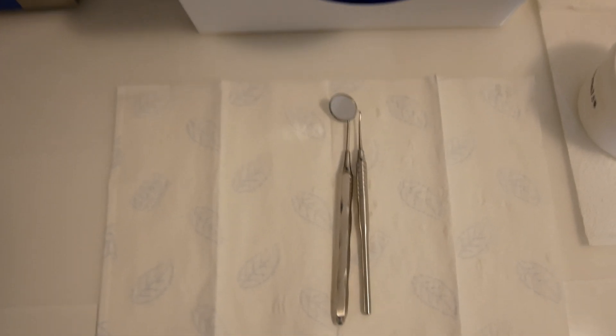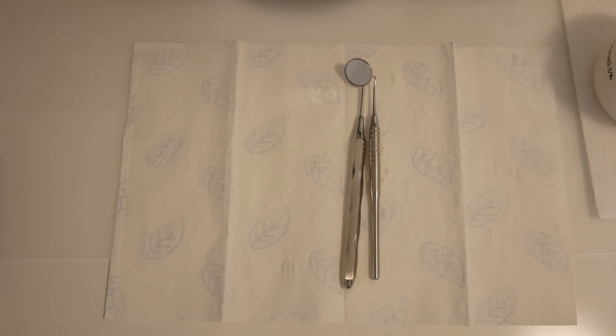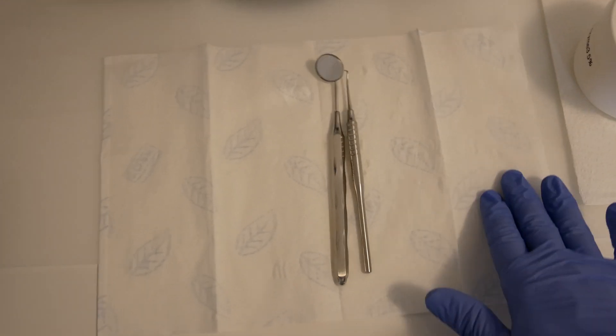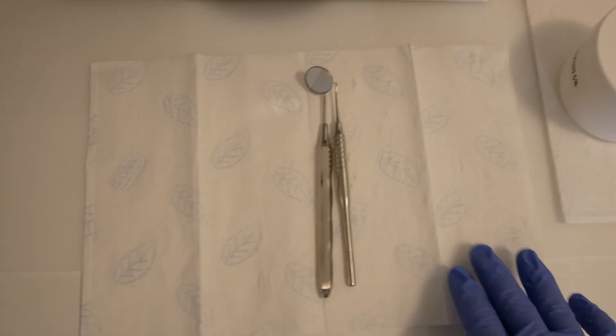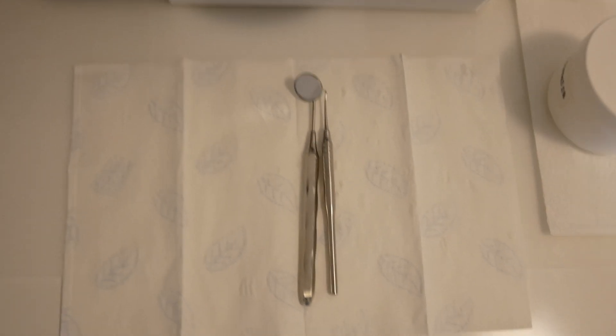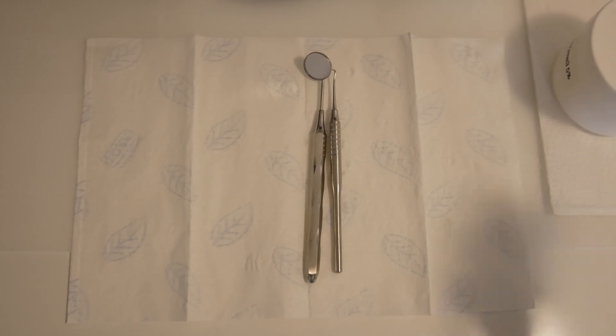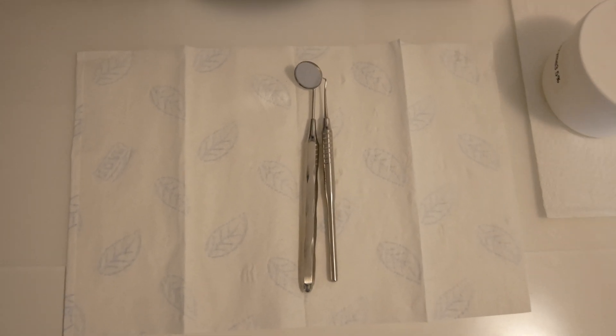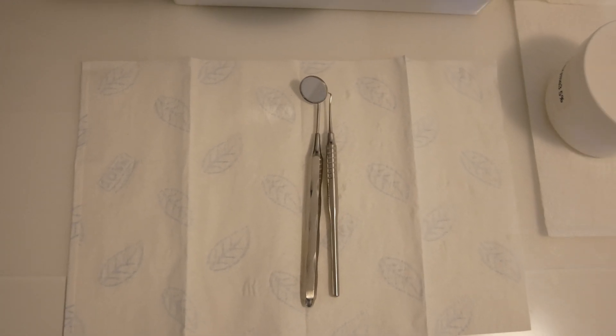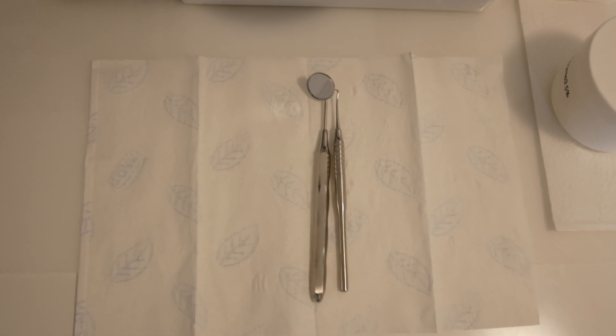Okay, we've rinsed our instruments again. Now we need to dry them. I'm only using paper towels to do this. Some doctors and assistants use cloth towels. I find this to be a bit more difficult as you need to process the towels, wash them, and so on. It's easier with paper towels.